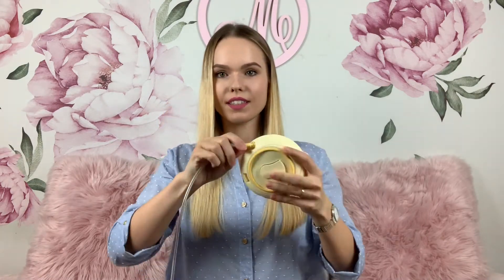After this, take the tube and find the triangle end, then insert it into the motor on the other side like this. Now let's assemble the pump body. This is how it looks. Let's attach the breast shield right here. This pump came with a 24 millimeter breast shield.